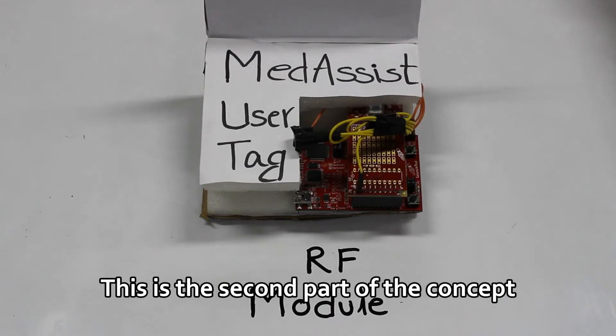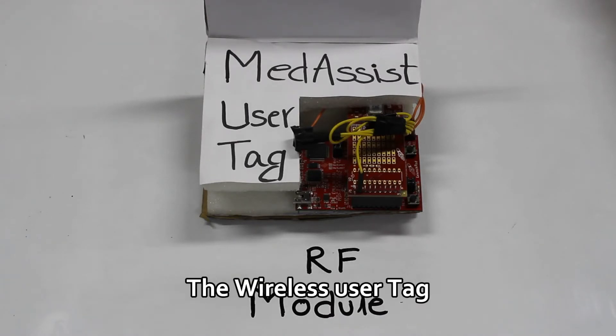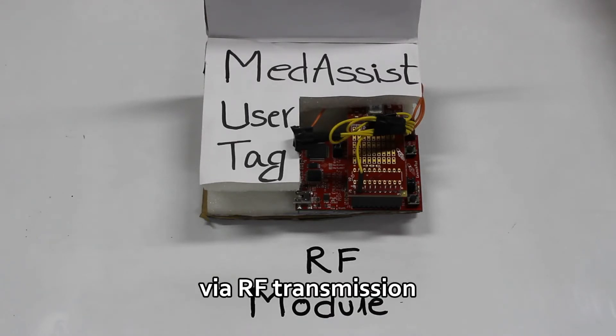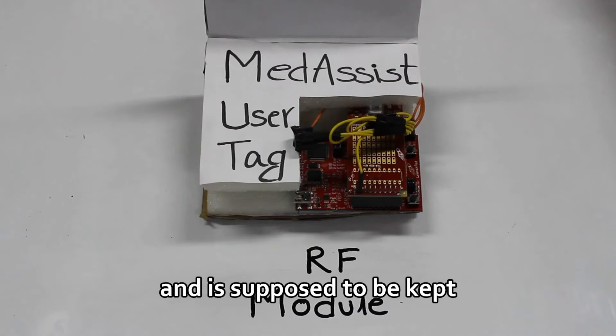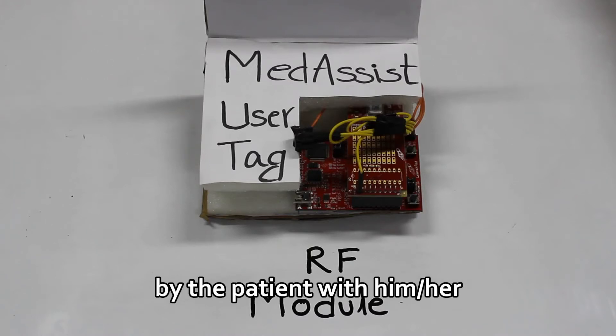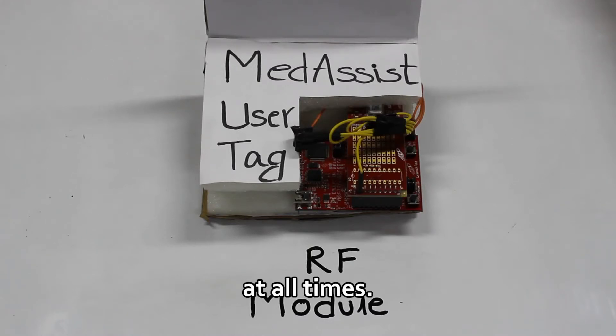This is the second part of the concept, the wireless user tag. It communicates with the main box via RF transmission and is supposed to be carried by the patient with him or her at all times.